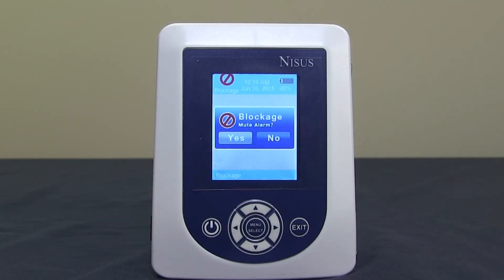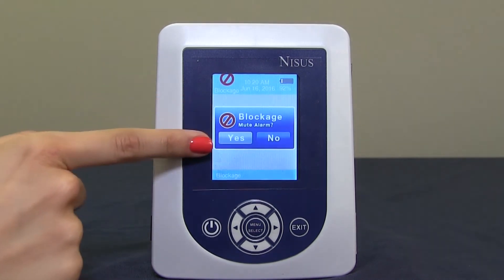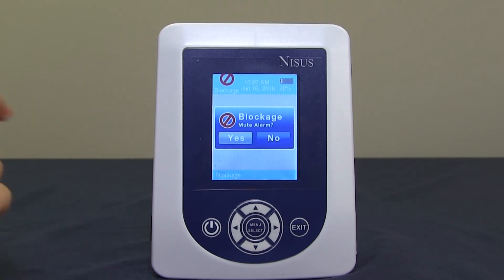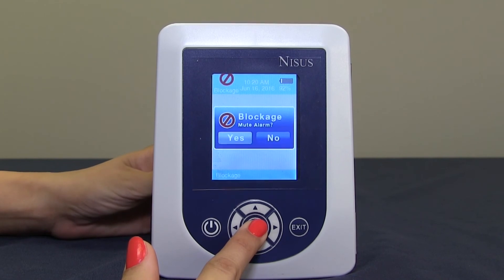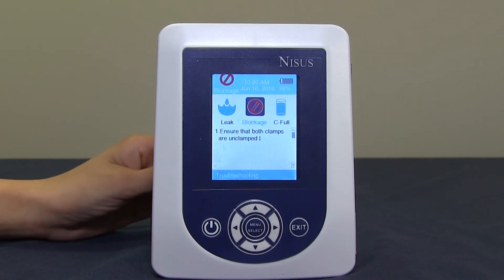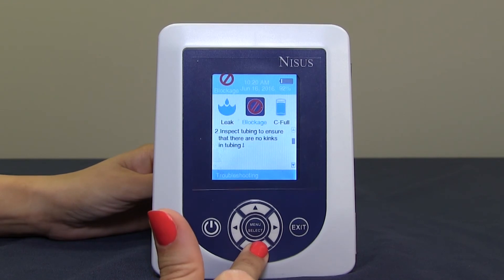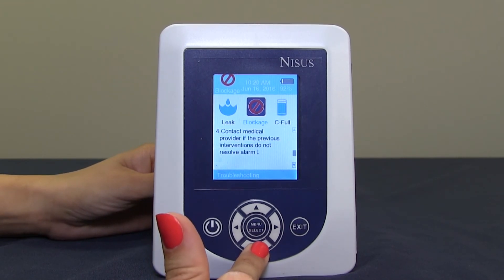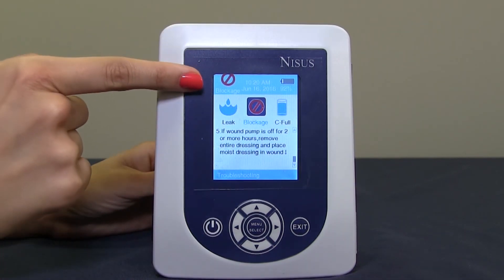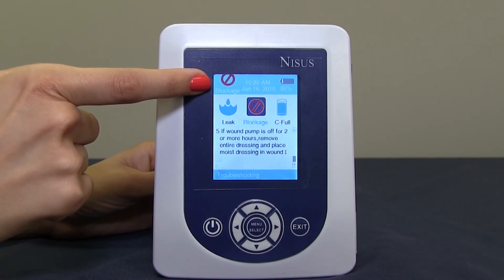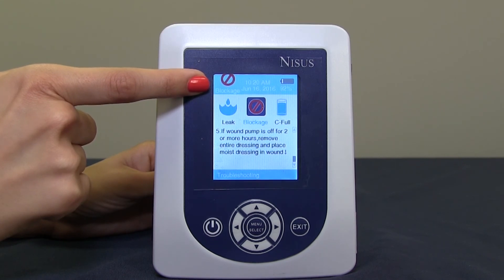Upon an alarm, a pop-up menu will display with an audible and visual sound. It will give you the ability to mute the alarm. Ensure that yes is highlighted. Once highlighted, press menu select. This will mute the alarm and it will take you to the troubleshooting menu for that alarm. Arrow down to read the instructions on how to rectify the alarm. The blockage alarm will display in the top left corner until the alarm is resolved.